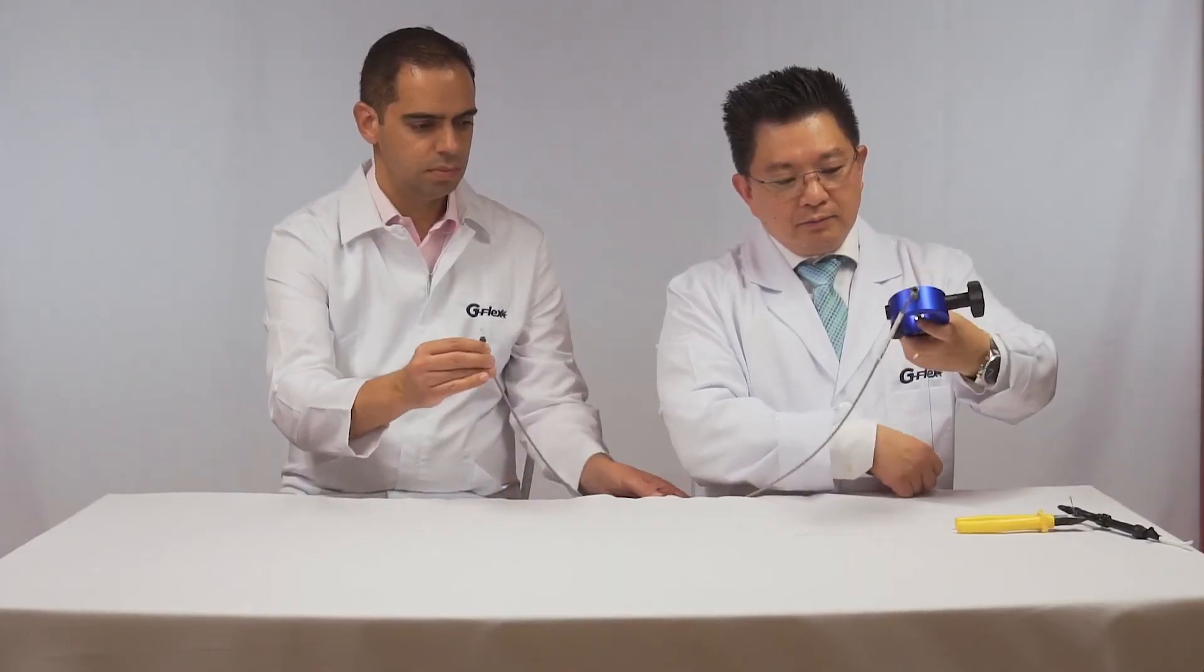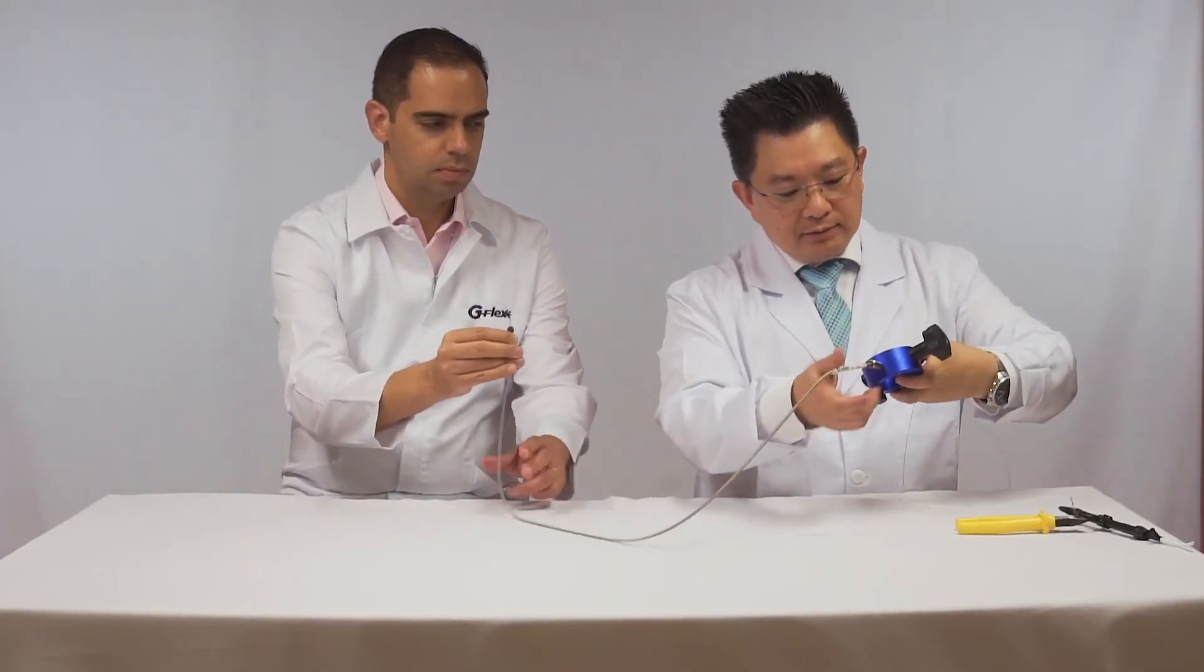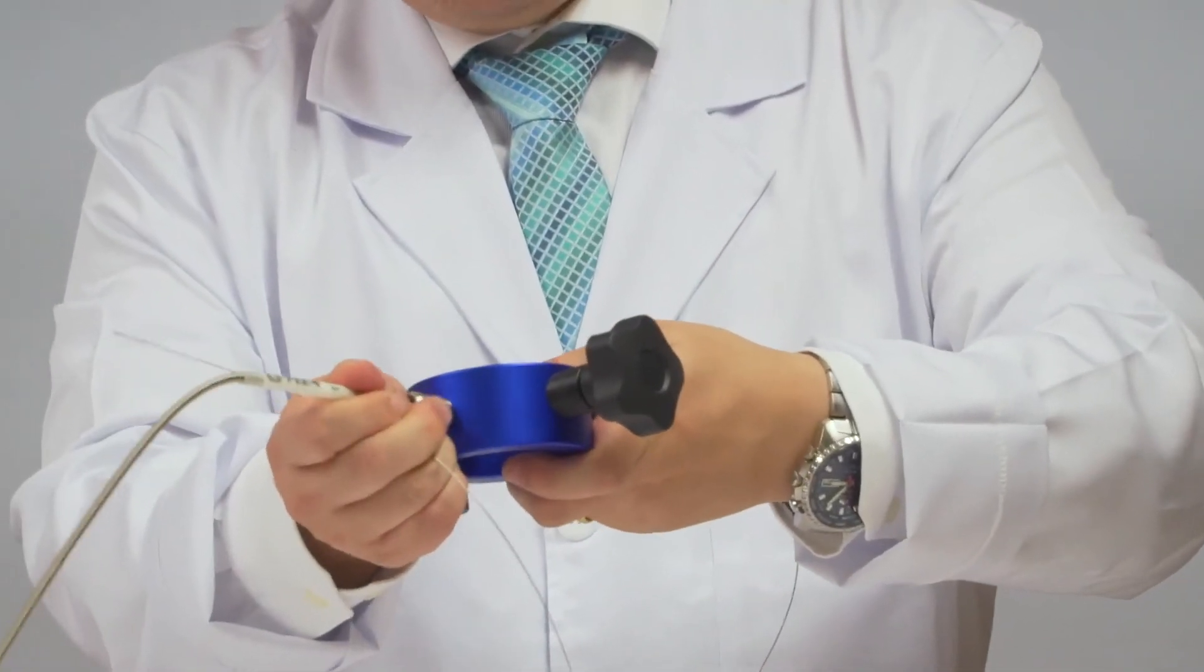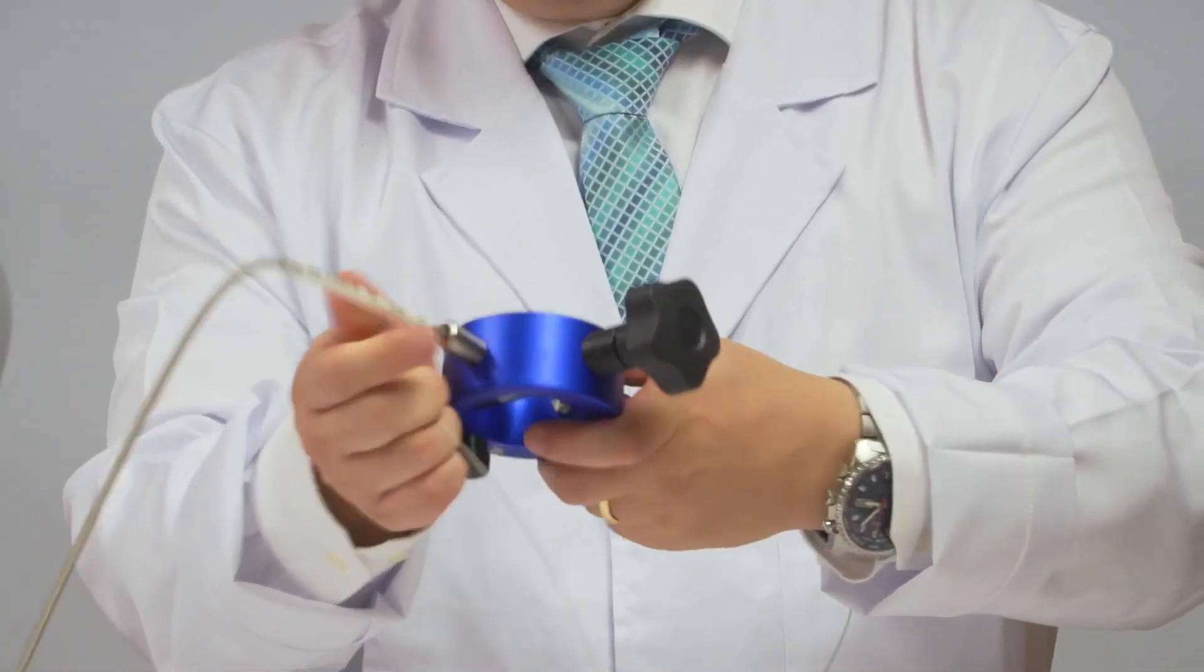You pull, you can pull, until the coiled sheath fits firmly on top of the handle.